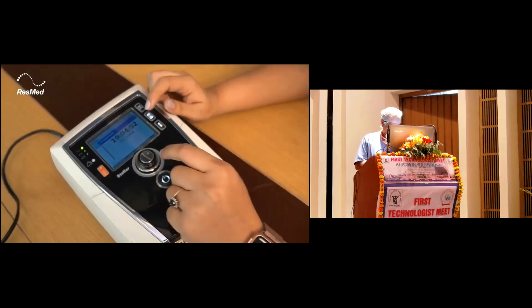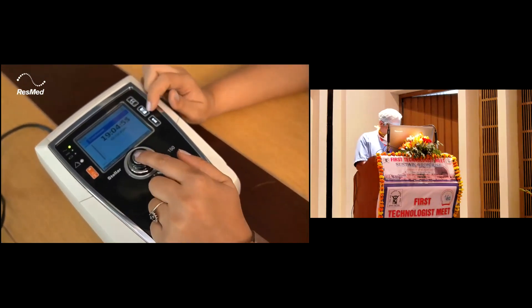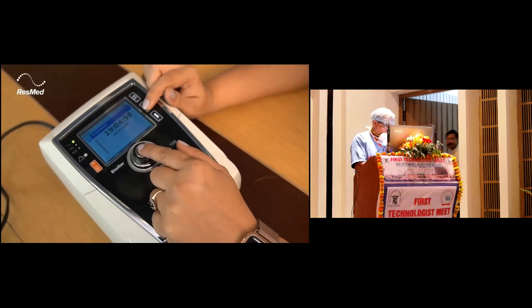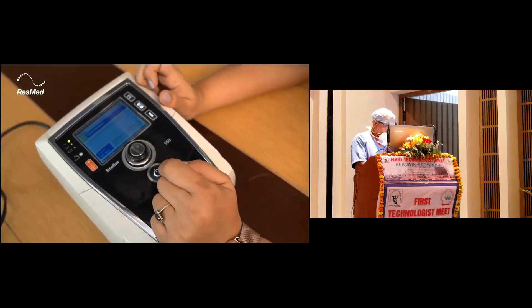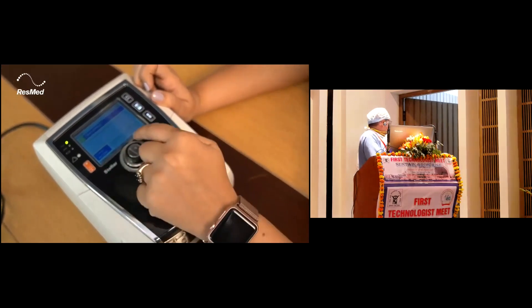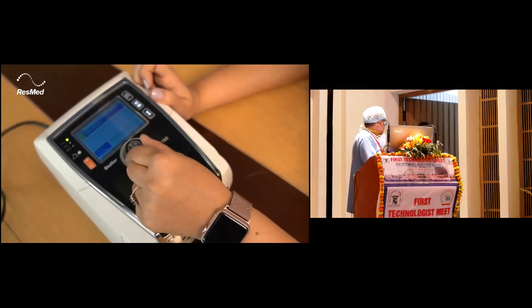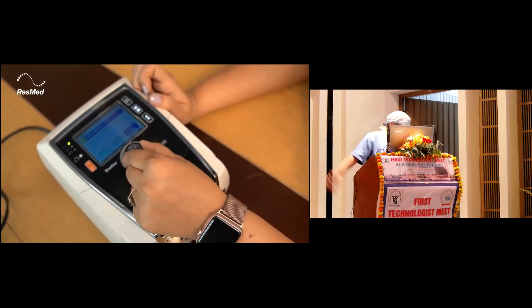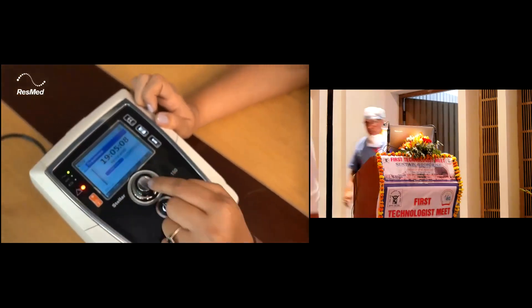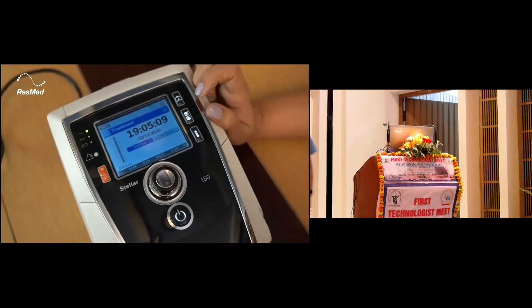To unlock this device, we have to use the power dial and settings menu and click on it for three seconds. Then you can unlock it for 5 minutes, 120 minutes, or unlimited. You just turn the dial, select unlimited, and click on the unlimited option.